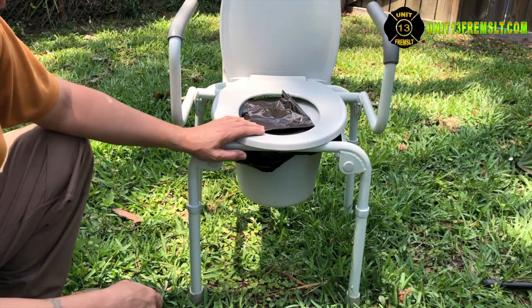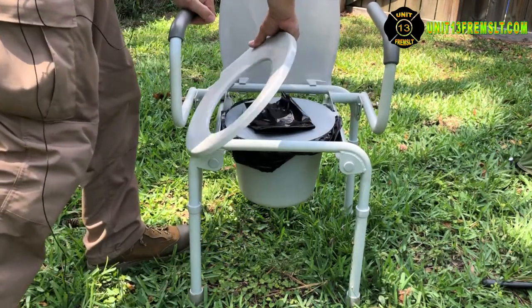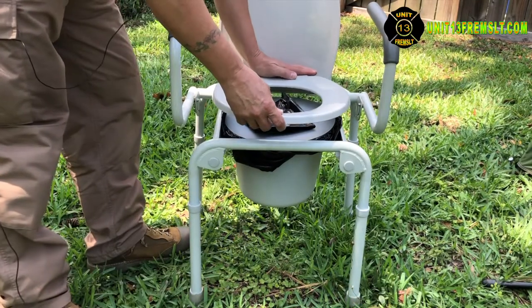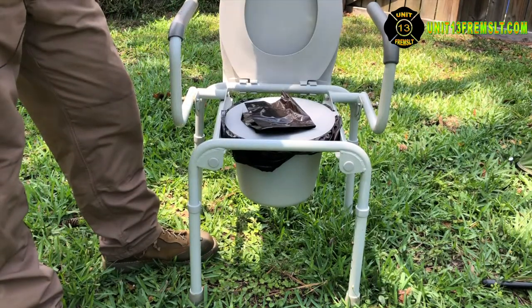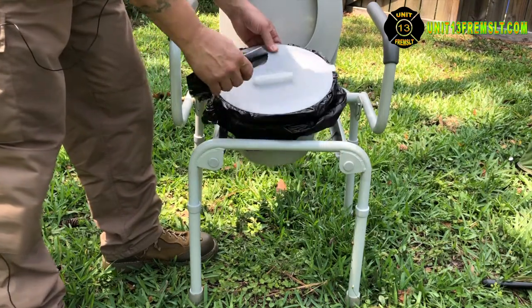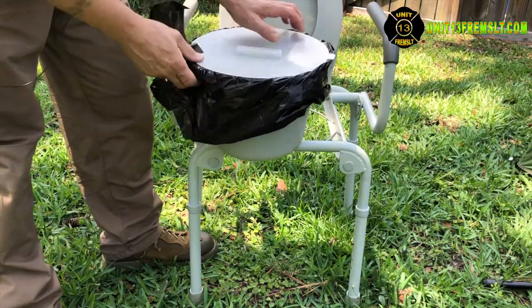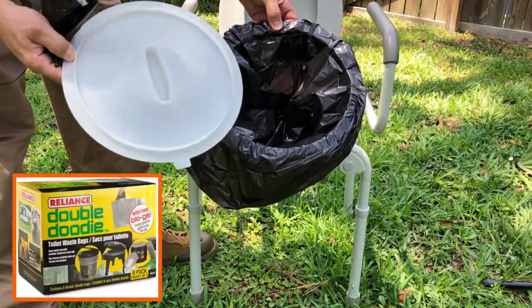Cleaning this is pretty easy — all of these parts come off so they can be literally soaked in disinfectant, dried off, and then put back on. That's what you do if you have a bad blowout. Each one of these commodes comes with a bucket that has a lid.